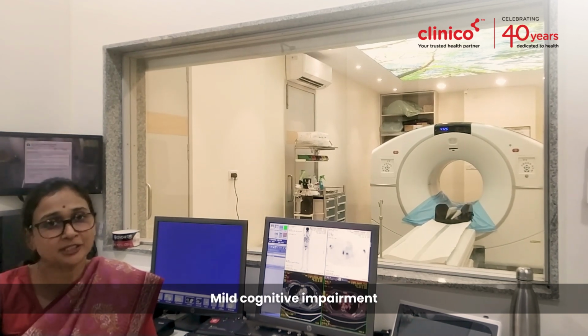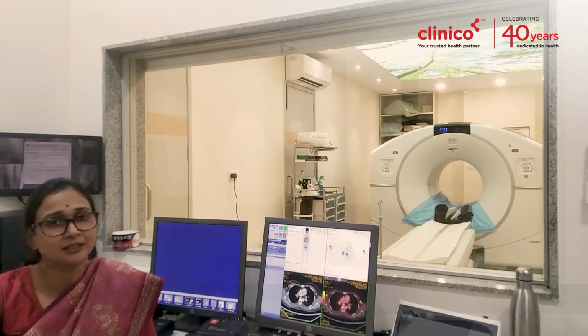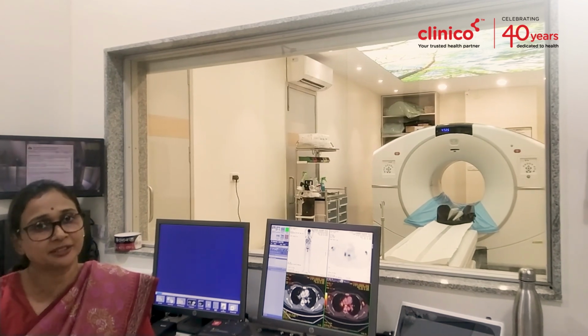In neurology, it is used to diagnose dementia like Alzheimer's disease, mild cognitive impairment, Parkinson's disease and atypical Parkinson's disease, epilepsy, tumors, and also it is used to differentiate between radiation necrosis versus tumor recurrence.